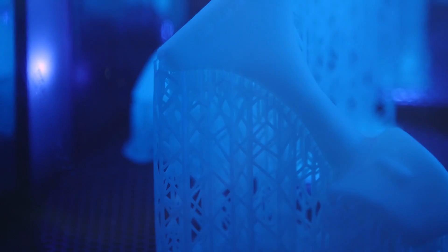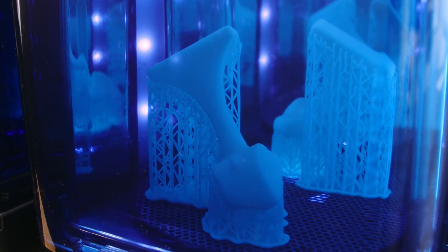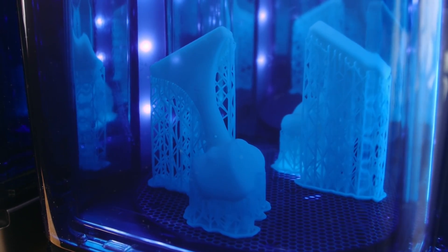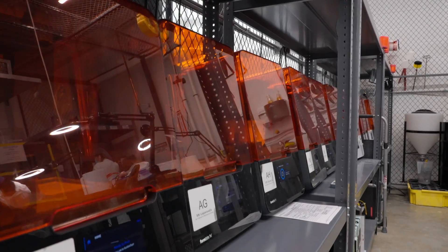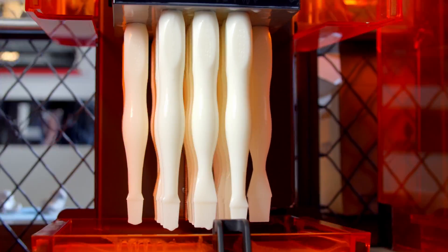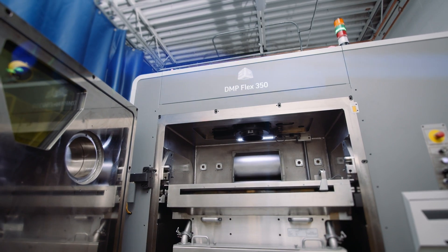Restore 3D's vision is to repair and reconstruct the human body. We are truly pushing the edge on patient-specific personalized solutions. Advanced manufacturing with regards to 3D printing—Restore 3D has a range of printing technologies. We have metal printers that are printing cobalt chrome and titanium alloys for most of our implants.